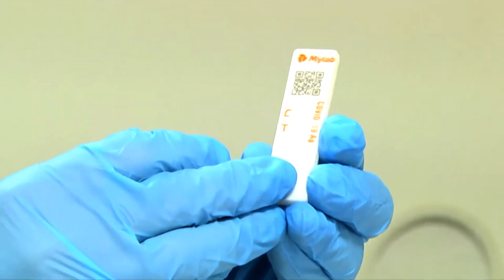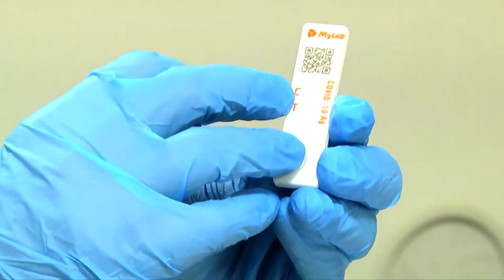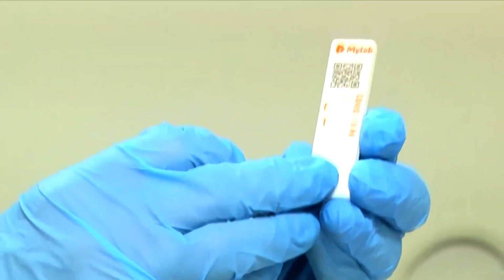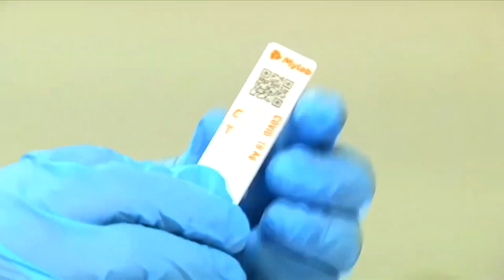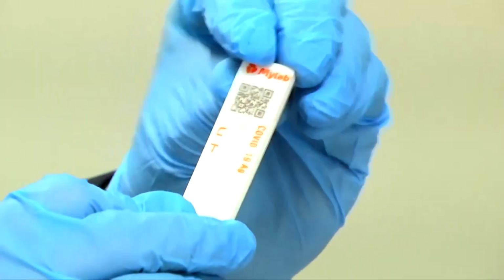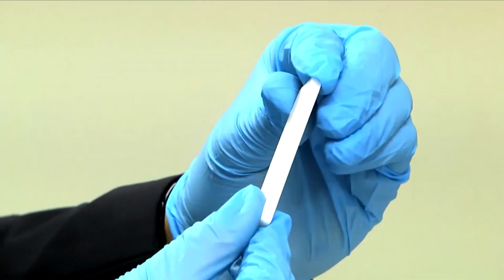If you have the COVID virus, then it will show color in the test zone and in the control zone also. And if you do not have it, then the control zone will show the color, the test zone will not. That principle I taught, right. So, this is the actual device, and it is available in the market.